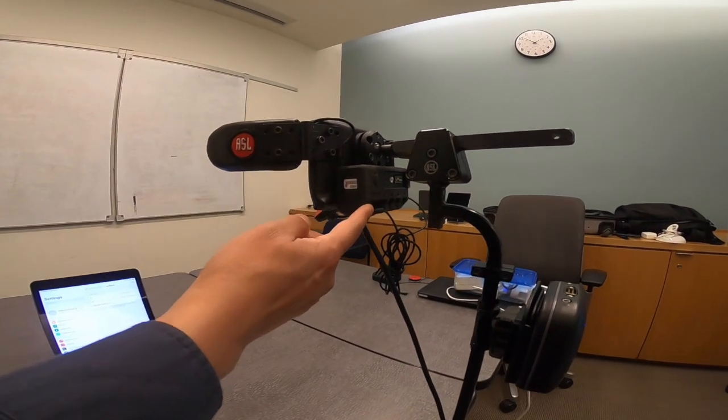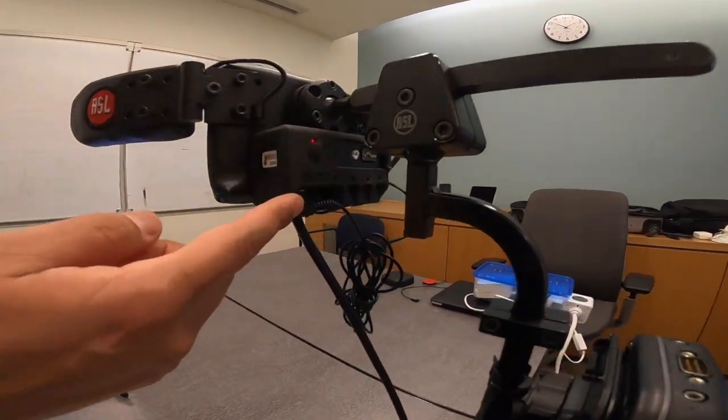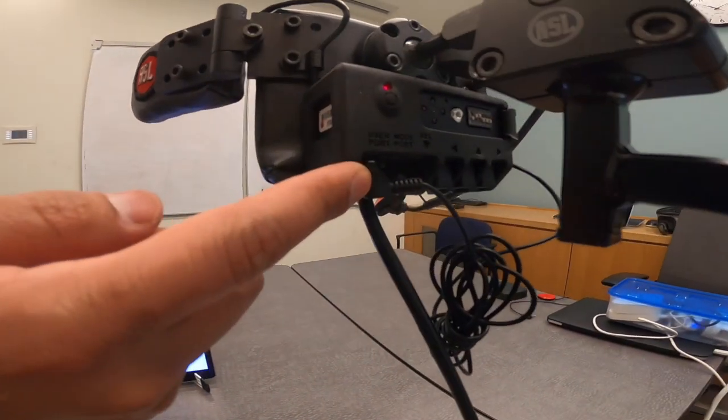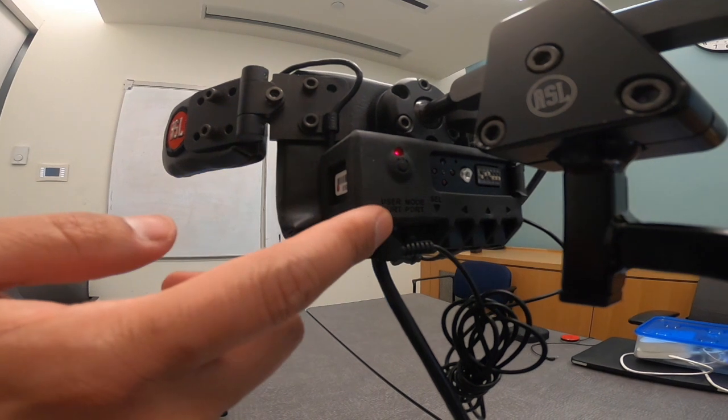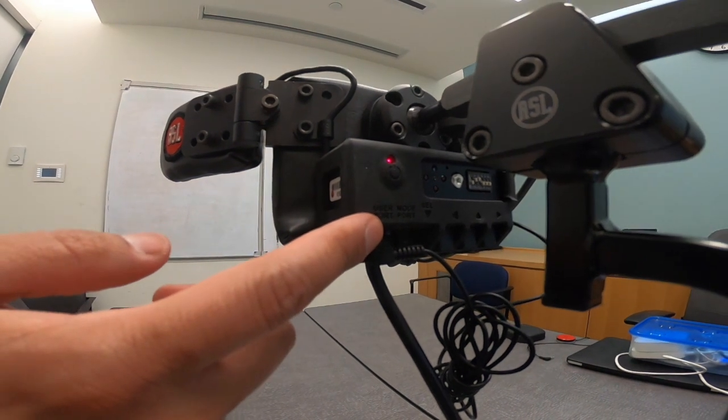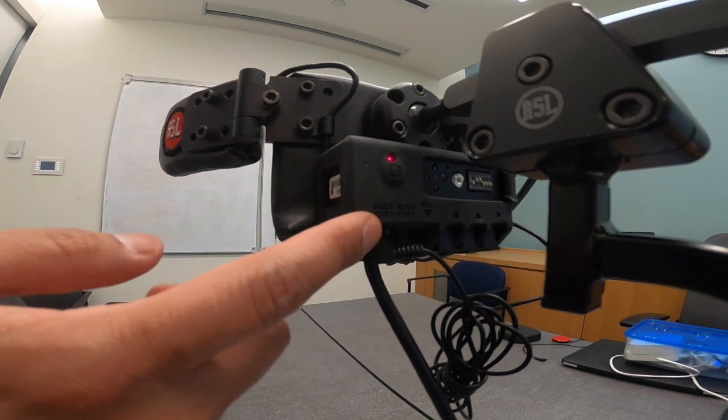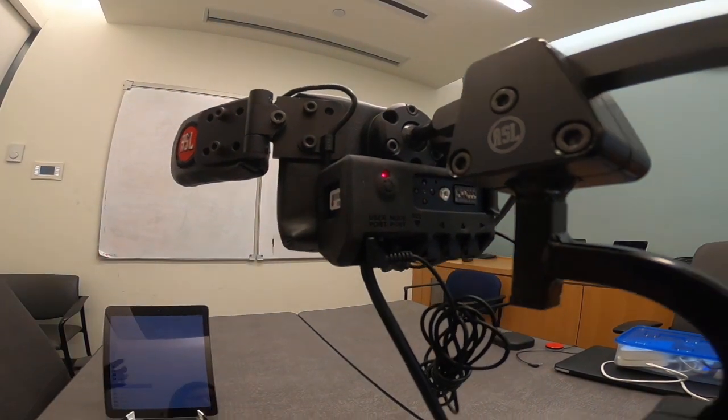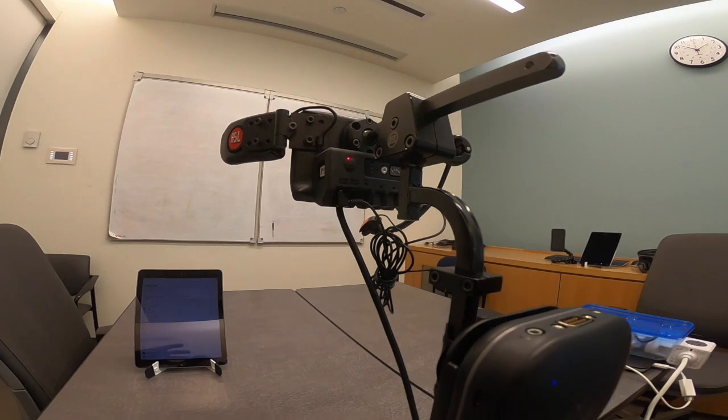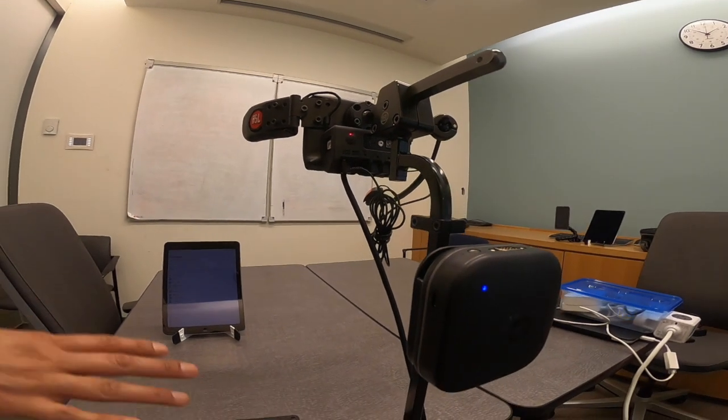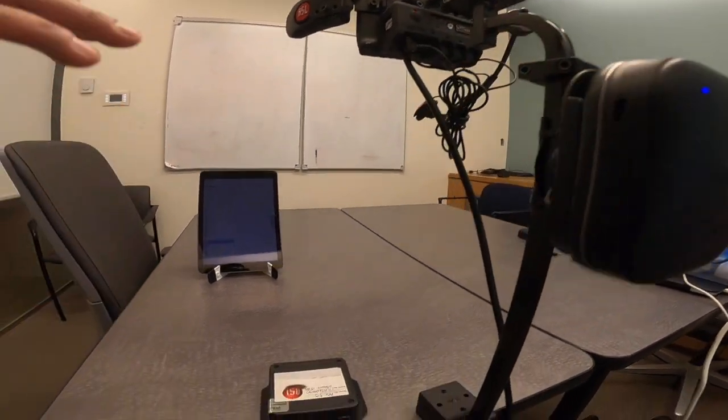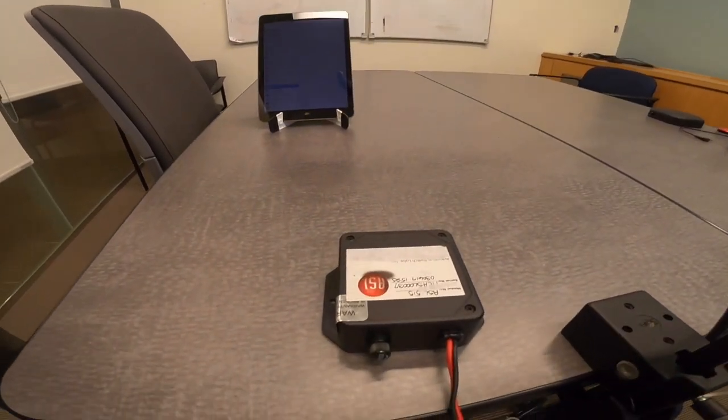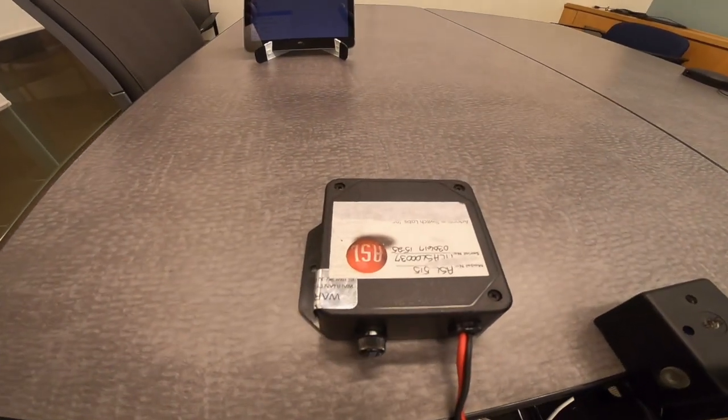The Atom is the box located at the back of the head array. This wireless transmitter connects to Tecla and other communication devices. Right now it is set up running on battery but can be mounted and used with a power wheelchair battery instead.